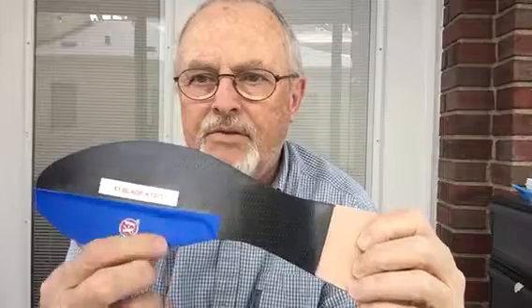We cut it for his soccer shoe. He's a size 13. This X1 Blade is right at one ounce and still a sixteenth of an inch thick. We've got the drop at the first metatarsal, the shear band cover for shear effect as it cuts so it doesn't get stuck, and then padded moleskin, eighth inch padded heel for comfort.